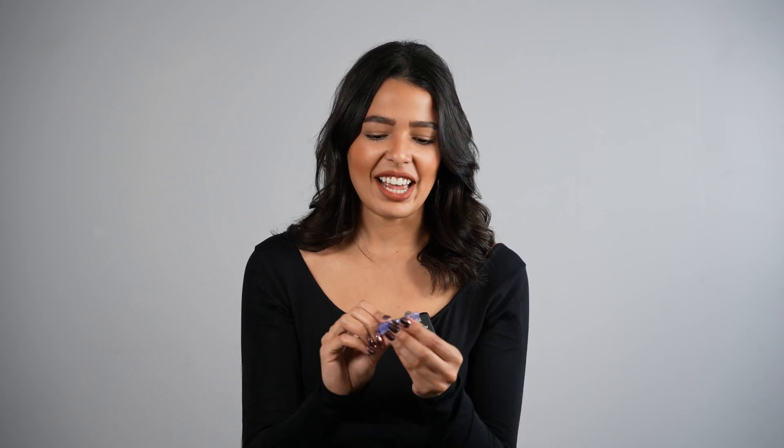My grandma needs a lot of that adhesive gel to not be in pain. So your grandma would probably like a 3D printed denture. I think I might have to make her one. It's a great way to help create beautiful smiles.